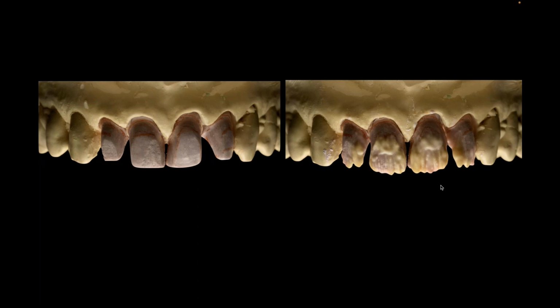Obviously, when I work with a foil, if you look at this alveolar cast, I wouldn't be able to get my foil margin right there without taking away all that tissue. The fact that we lose the tissue, or we lose the information, has been another reason that I've kind of shied away from foils over the years, besides the fact that I kind of stink at them. But the truth of it is, I want the most information. And the most information is having my tissue cast, which for me goes back to refractory dies rather than foil. Nothing wrong with foil, by the way. I'm not knocking the foil people. It's a good technique. I just prefer refractory.